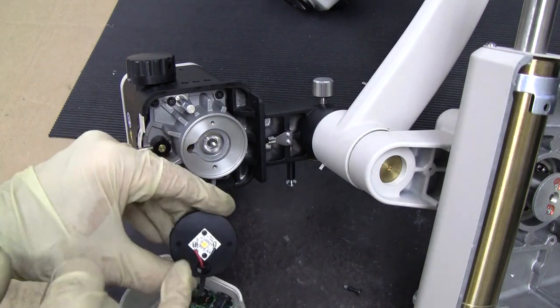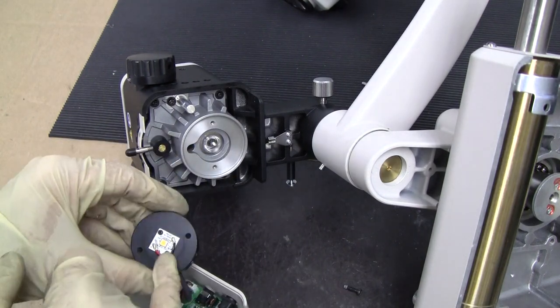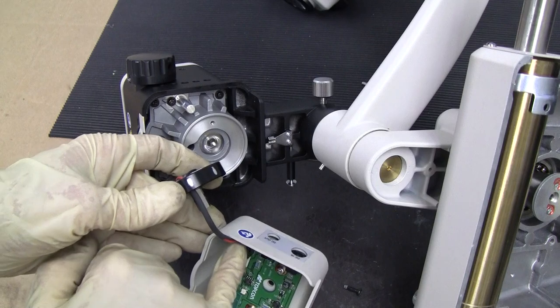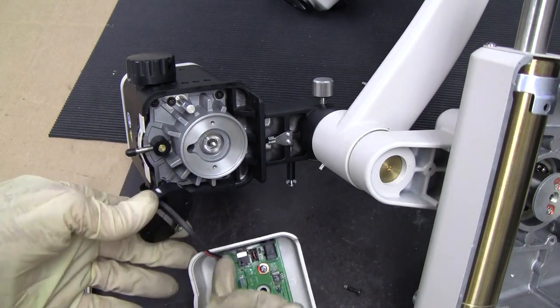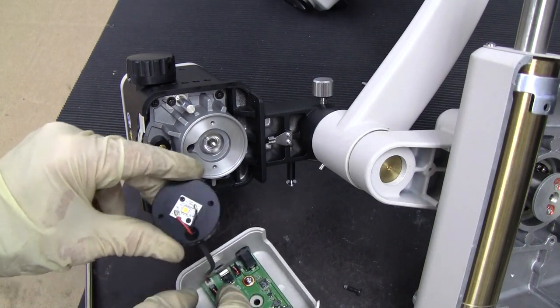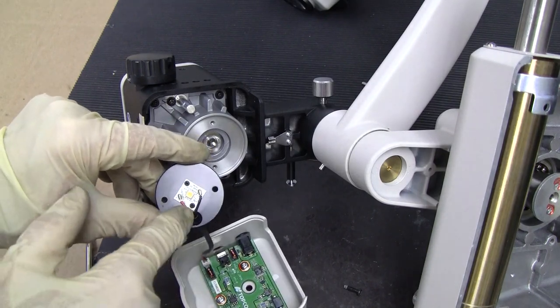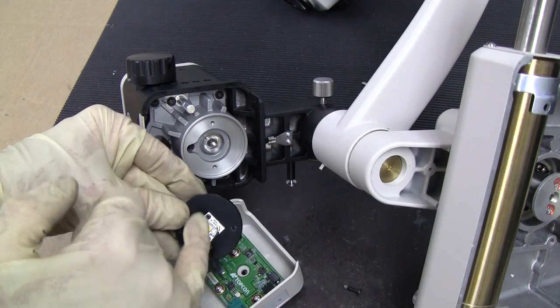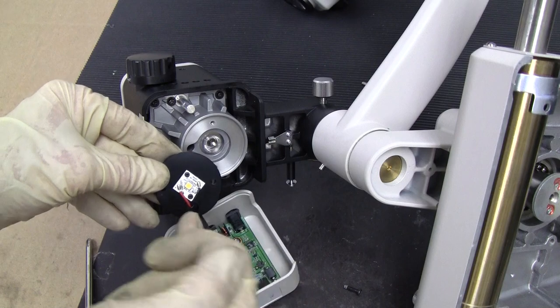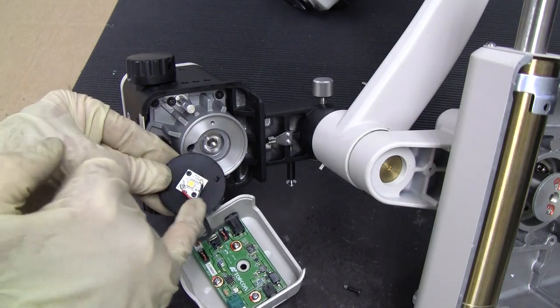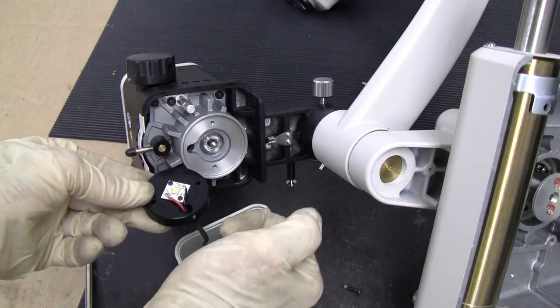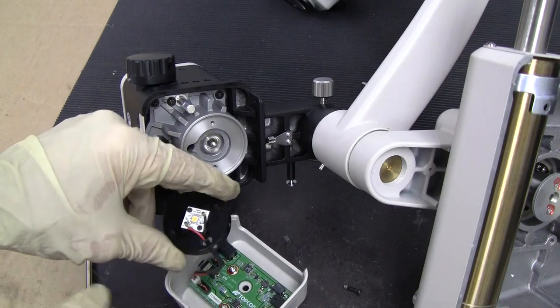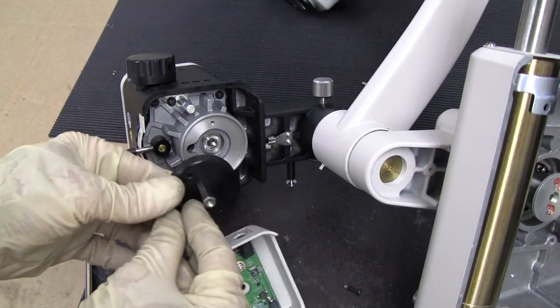Just to show you, this LED has a wire going to it and it has a plug. There's a hole in this disc that's wide enough for that plug to go in. So if you buy this little LED, it's got two screws. You'll be able to stick the plug through the disc and plug it in that way. It should come with the wires already soldered on there.